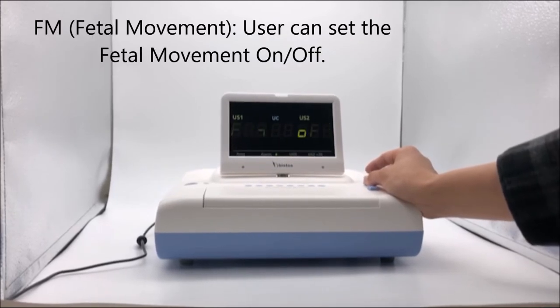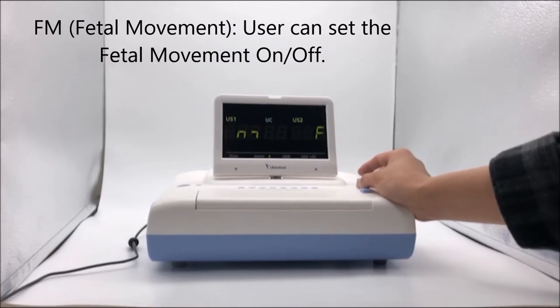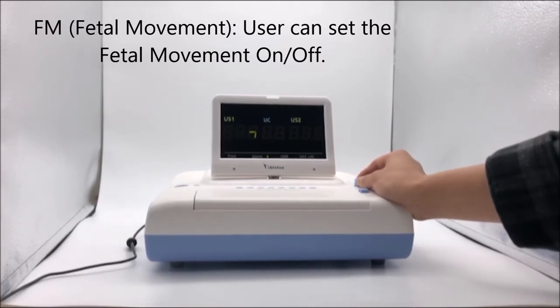Fetal Movement: the user can set the fetal movement on or off.